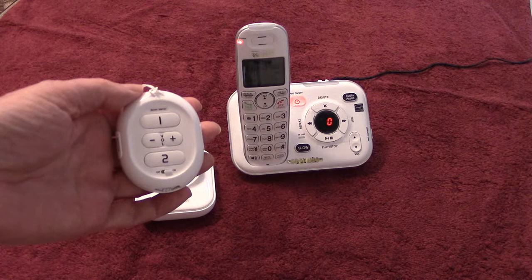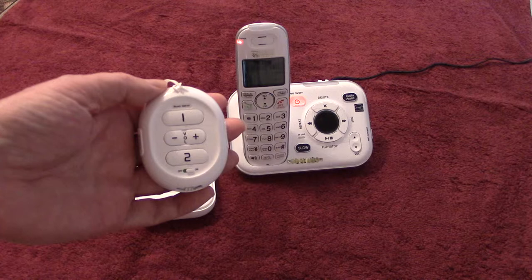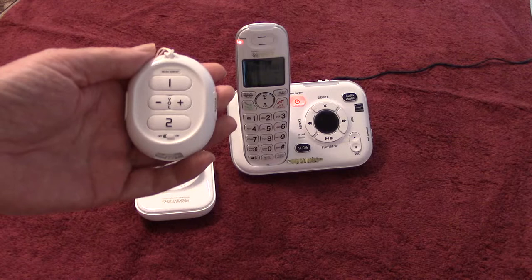These buttons are used to access our emergency contact numbers. Today I'm going to show you how to program button number one. Once I finish showing you how to program button number one, button number two will be programmed in the same way. Let me put the pendant back in its base and I'll show you how this is done.